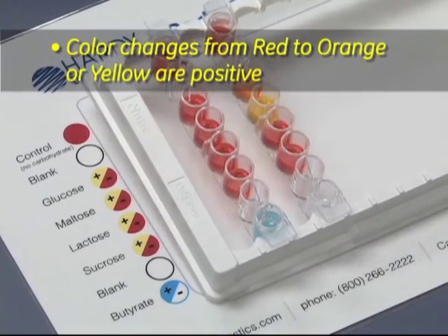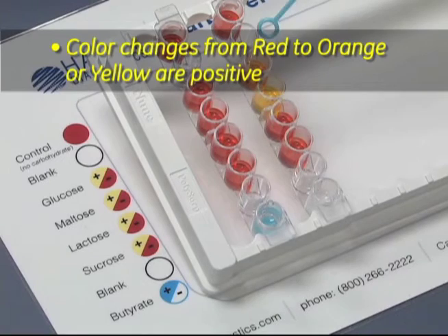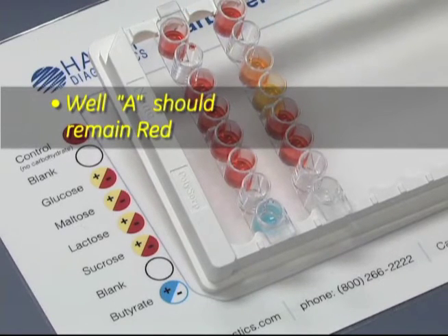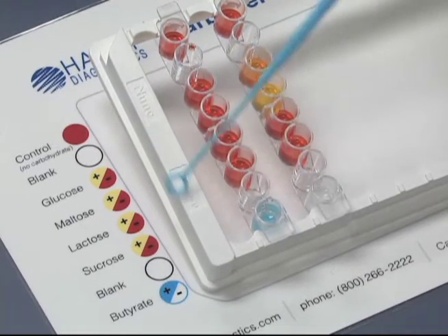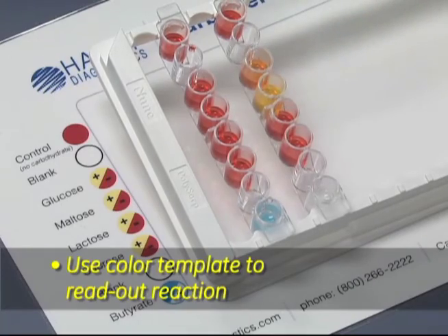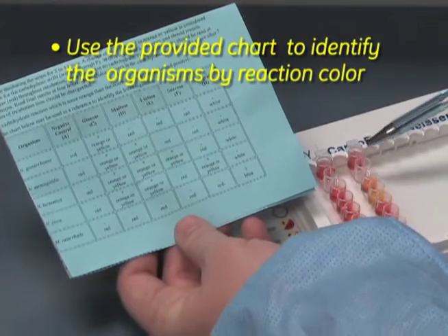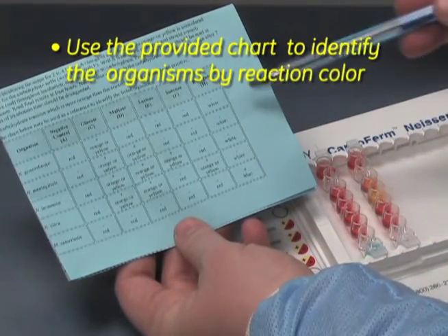Any color change from red to orange or yellow will be a positive. The first well, which is well A, is a negative control and should always remain red. Use the color template provided to read out each reaction, and use the chart located in the technical insert to match up the reactions for your identification.